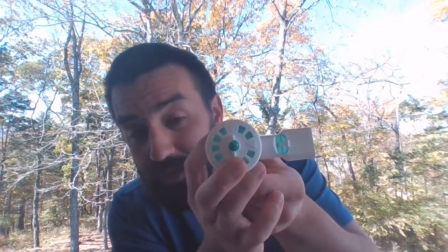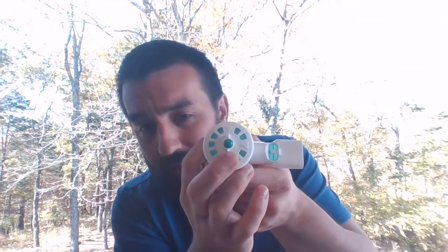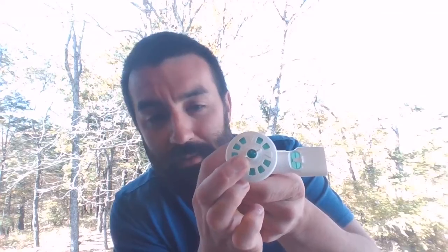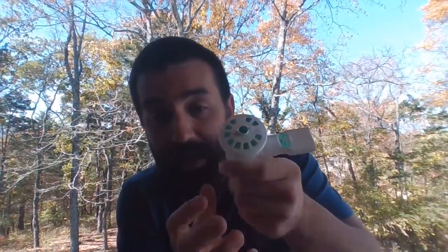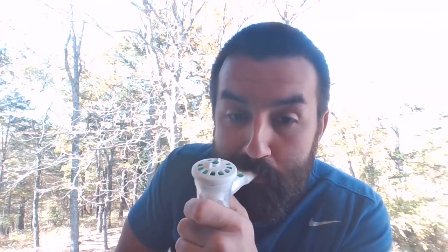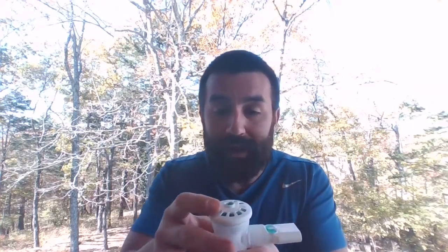If you had a patient that was taking a mouthpiece treatment and just having trouble doing that, or they're just a talker and keep taking pauses, and you're like, okay, this is taking forever here. All right, let me go ahead and make a little change here. You turn this over to the solid triangle until it clicks, and now it would be continuous. So if I'm breathing on this, you'll notice my little valve is already down all the way. So it would continue to allow that gas to go through and make an aerosol, okay?